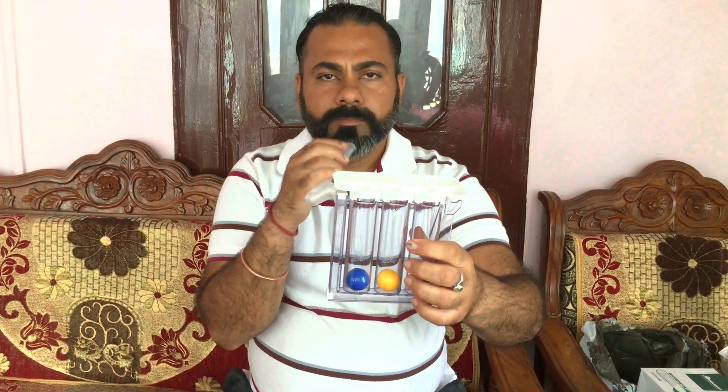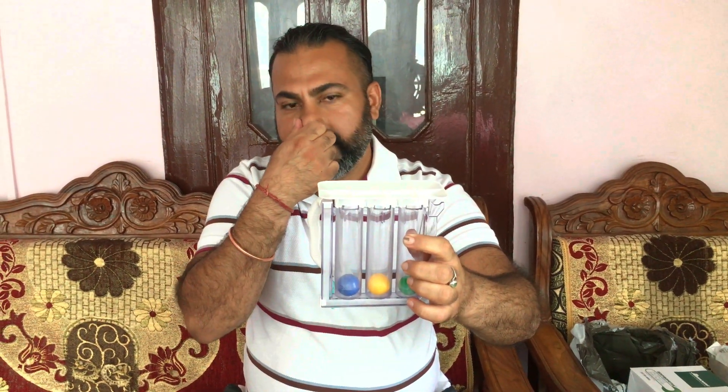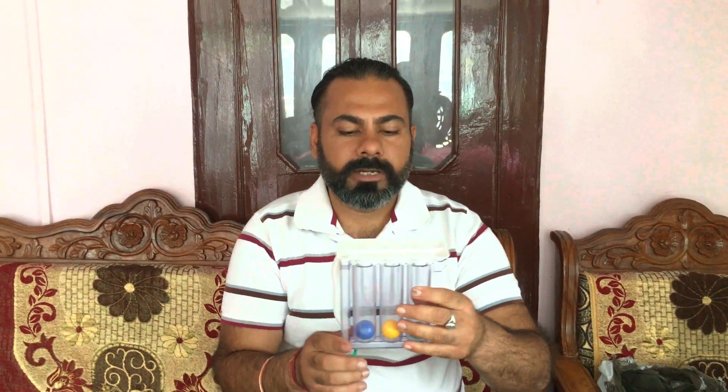So this way the ball should stay up for a long time. If you practice slowly, it will increase. Then the second exercise comes in which you have to breathe out and exhale forcefully. You can see that it works in this way. You have to practice this 10 times and in a day you can do it 3 times. If you have a problem with lungs, asthma, or any problem, then you have to improve your lungs. This is a way to measure your improvement, like doing yoga. So this is our spirometer.